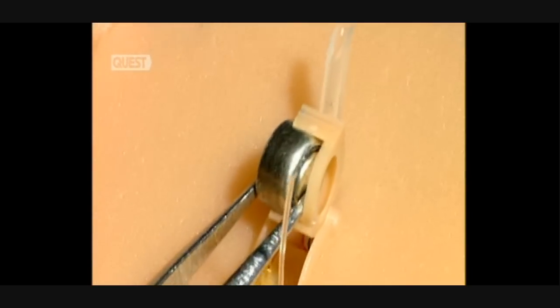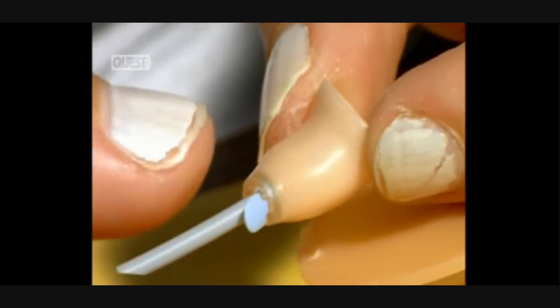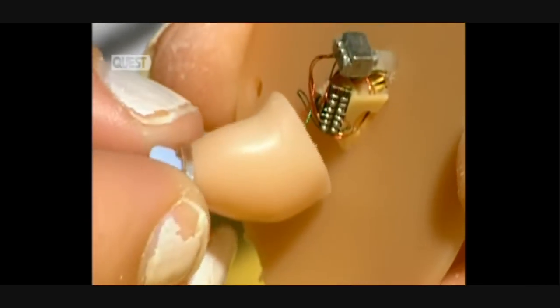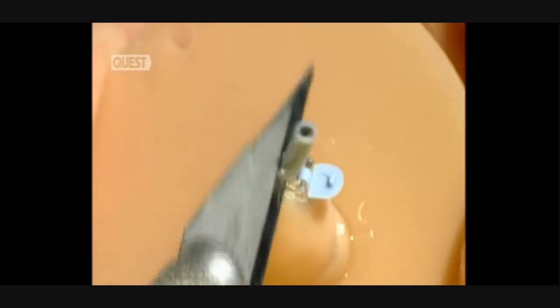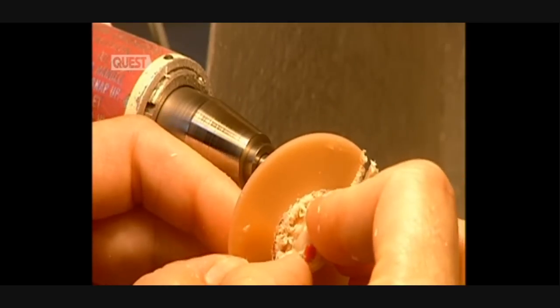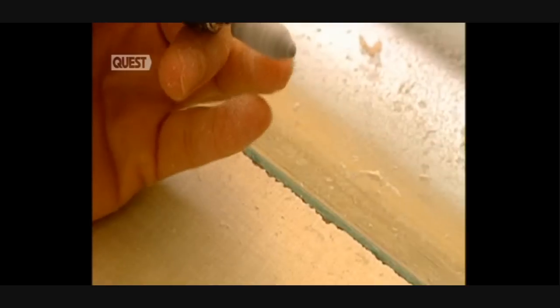Then the battery is installed. Only a few parts, such as the microphone, remain to be put in place, and then everything is delicately assembled into the interior of the prosthesis. The two parts of the hearing aid are then glued together — again, ultraviolet is used as it hardens the glue. The plate used to position the prosthesis components is cut away with a drill. Then the hearing aid is manually polished to make it perfectly smooth and comfortable.